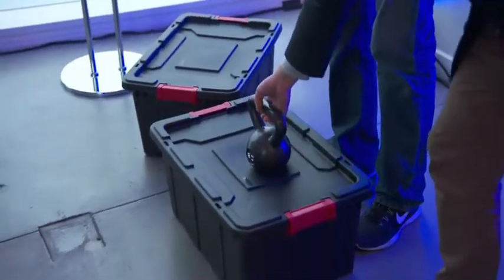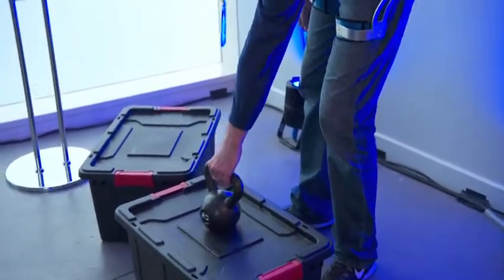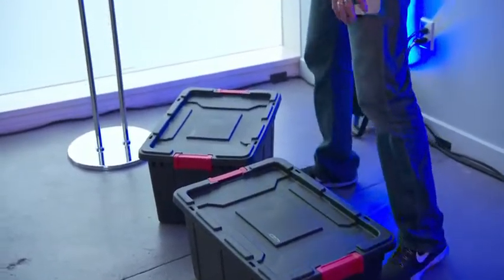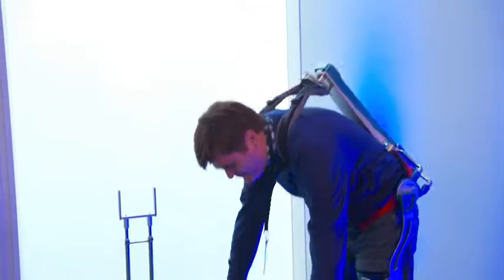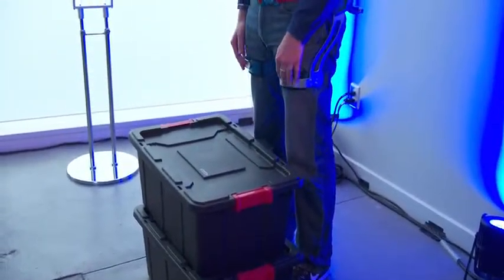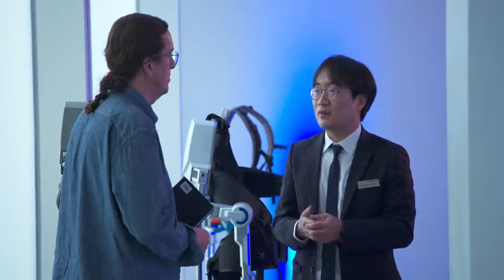Try the box again — just go up and down with that box. It's really good. Maybe in four or five months we'll supply a medical certificate to our government, and then we can supply this kind of product.